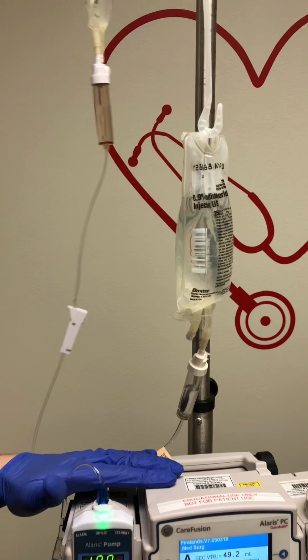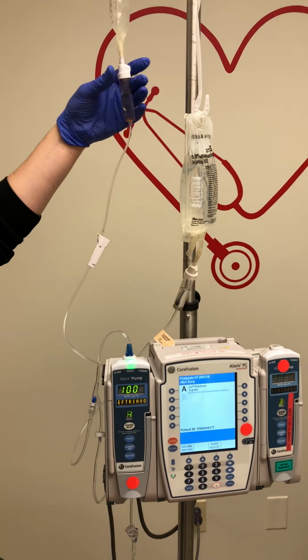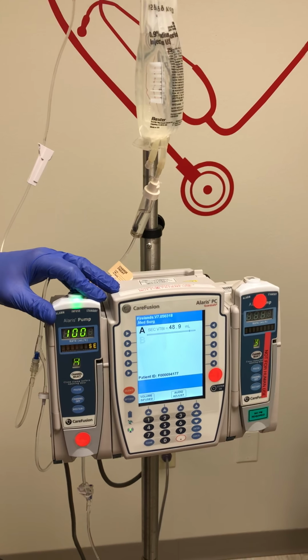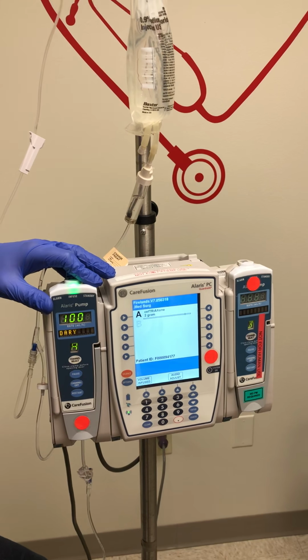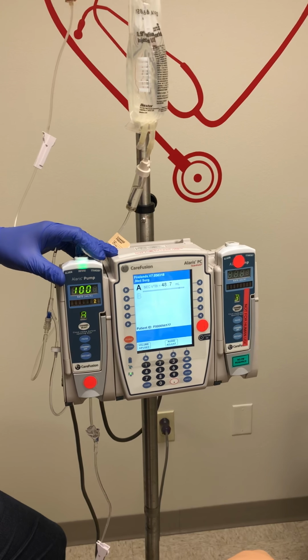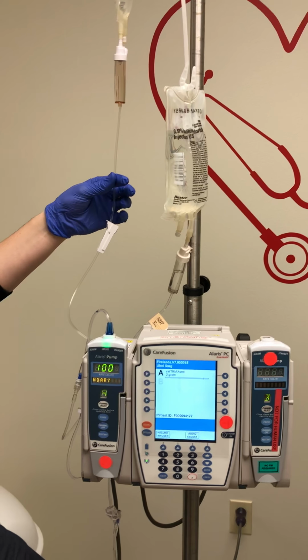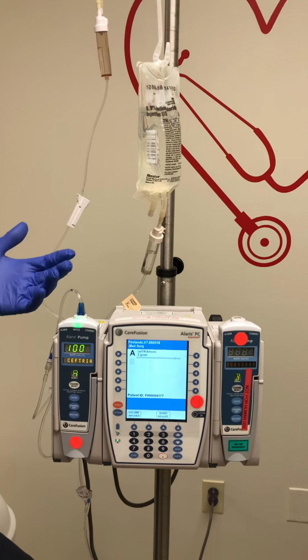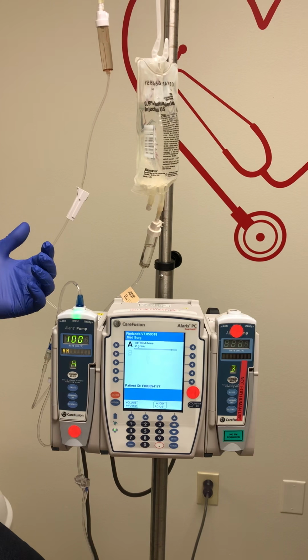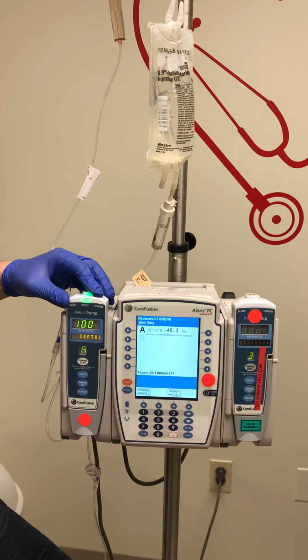The Alaris pump will recognize when the prescribed volume of the secondary infusion has been completed, and it will automatically transfer back to your continuous rate at 125 milliliters an hour. So as a nurse, you want to make sure you are assessing the patient as the medication is being infused. You want to assess to make sure that your secondary IV solution is being infused properly, and then return to the room to reassess the patient after that prescribed rate and volume has been infused, to make sure we have transferred back to our primary infusion rate of 125.